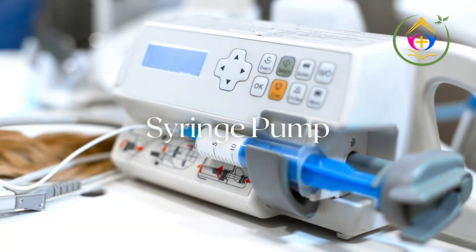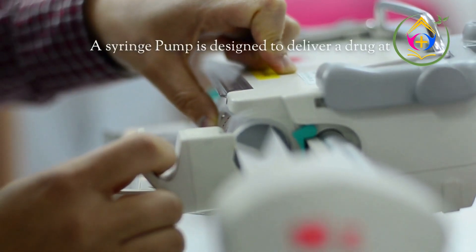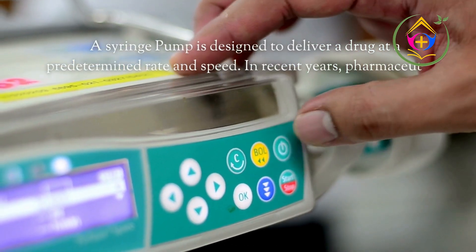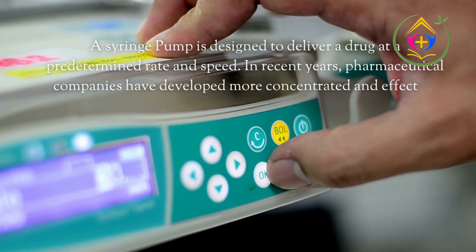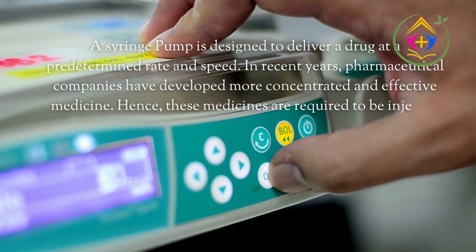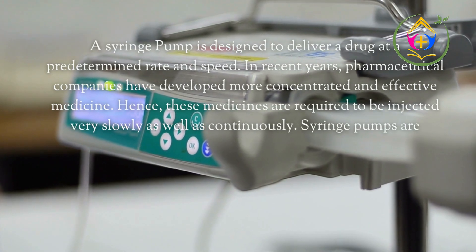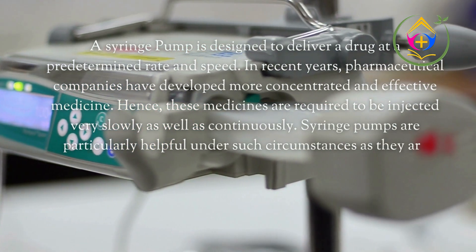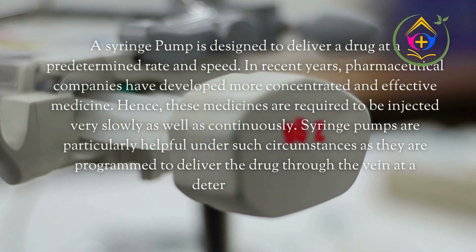Syringe Pump: designed to deliver a drug at a predetermined rate and speed. In recent years, pharmaceutical companies have developed more concentrated and effective medicine. Hence, these medicines are required to be injected very slowly as well as continuously. Syringe pumps are particularly helpful under such circumstances as they are programmed to deliver the drug through the vein at a determined rate.